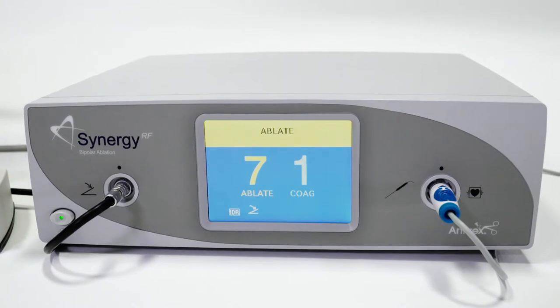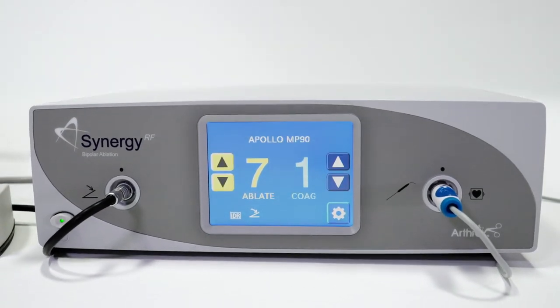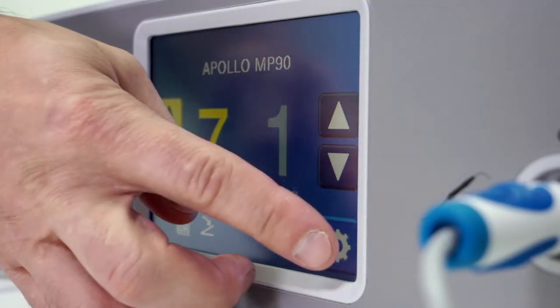The console has a user-friendly touch screen with product and activation modes, as well as adjustable settings.